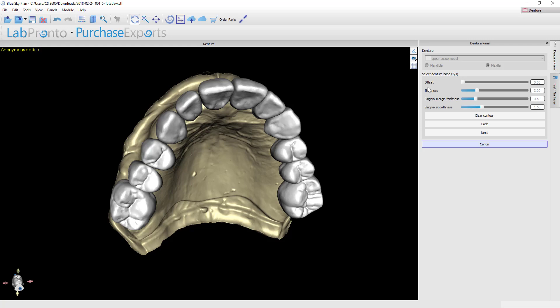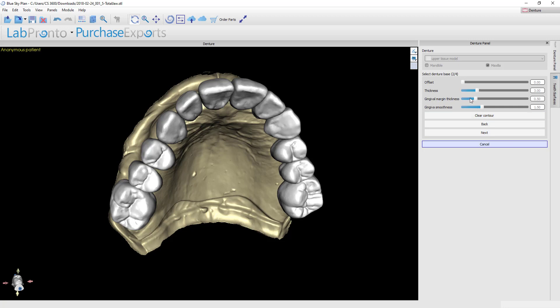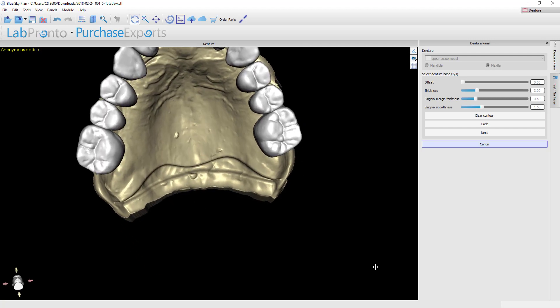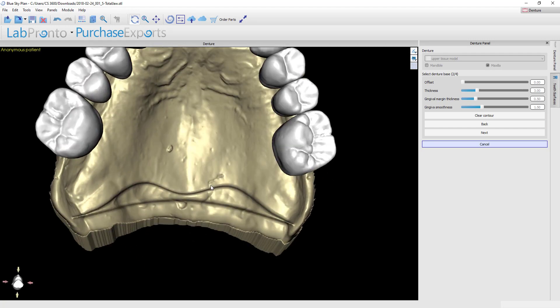If on the other hand you want to be able to print this and have it go on and off of a physical model and be able to seat completely, then you're going to need to incorporate an offset, probably up in the realm of 0.3 millimeters. You might just print a few of those and play with the number in your printer that you get the best fit with. But I'm going to go with an offset of zero. I'm going to go with the default thickness of three millimeters for the denture base. You can also alter how much material there's going to be right around the neck of the teeth and the overall denture smoothness.